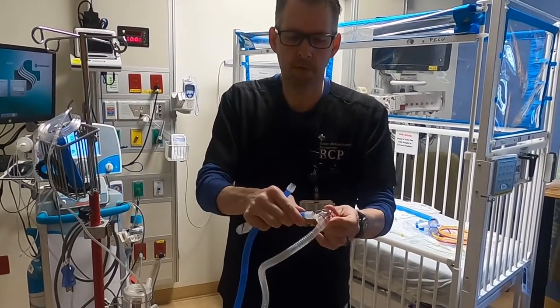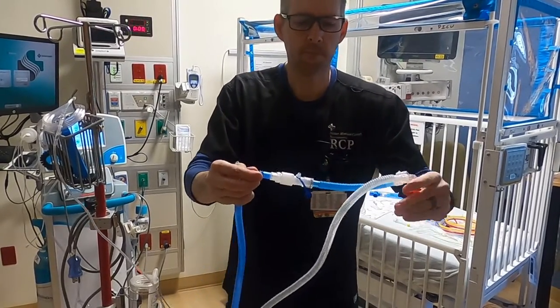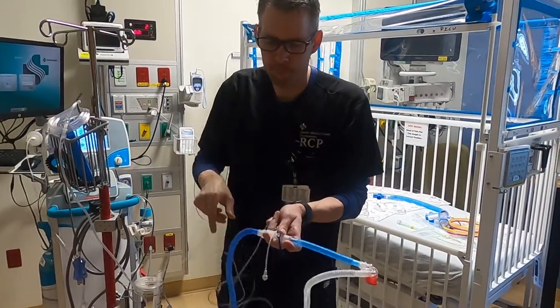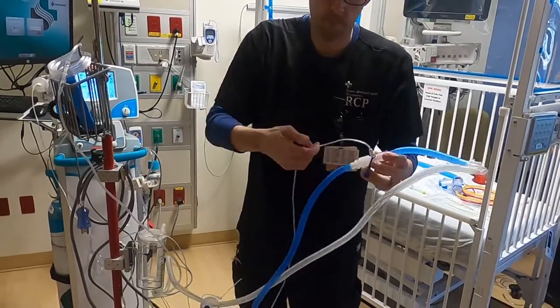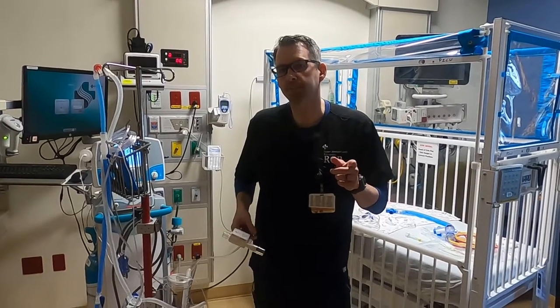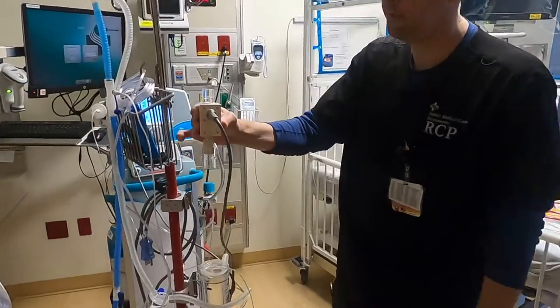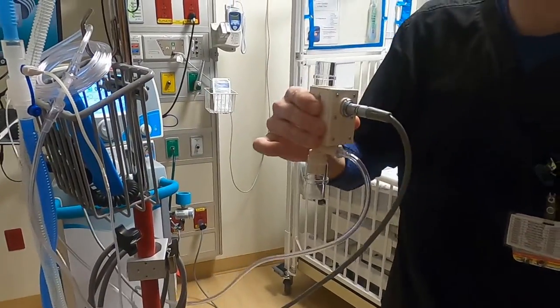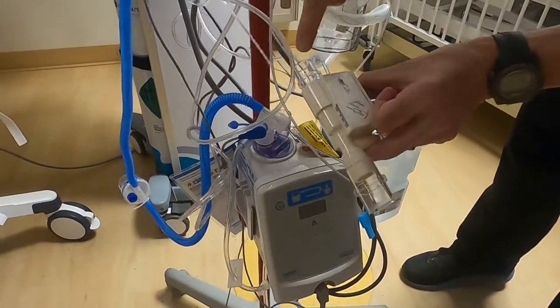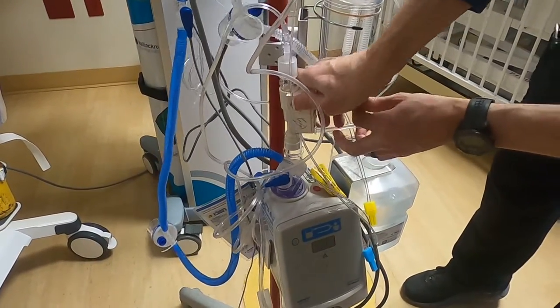For the bubble CPAP with nitric oxide, you have your injector with the arrow pointing down, going on the dry side of the column. You have your 15 and your 22 adapters — that goes there, and that goes there. Then your sample line goes there on the inspiratory side.